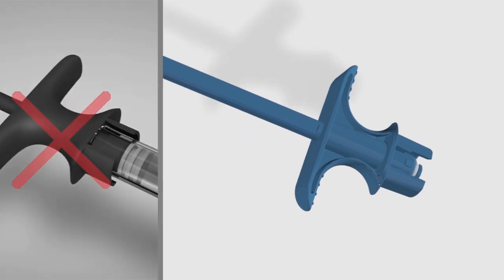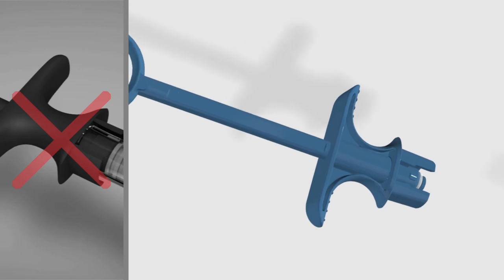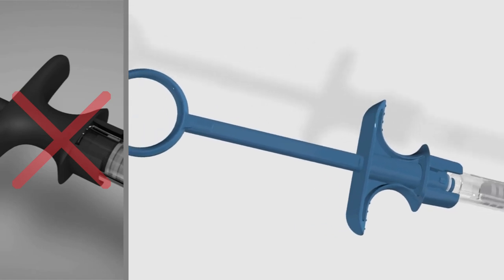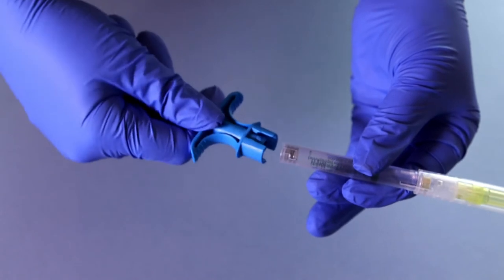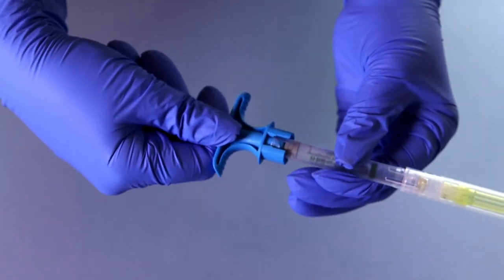ULTRA SAFETY PLUS TWIST now has a new patented locking system. Align the pins on the handle with the notch of the barrel, then push until the end.